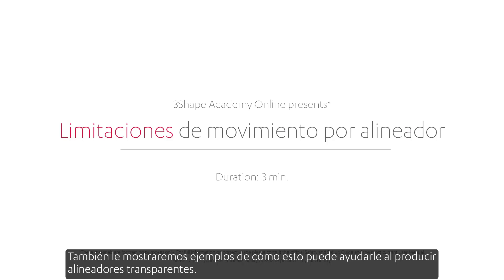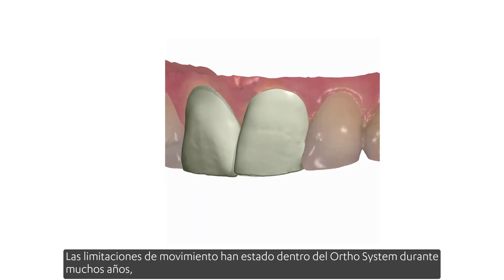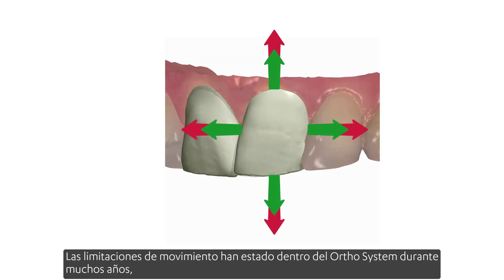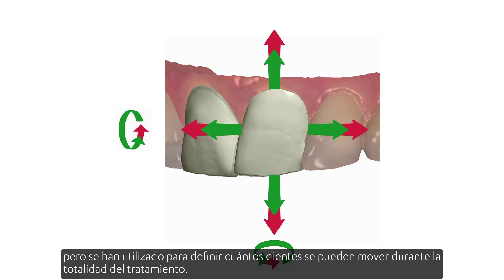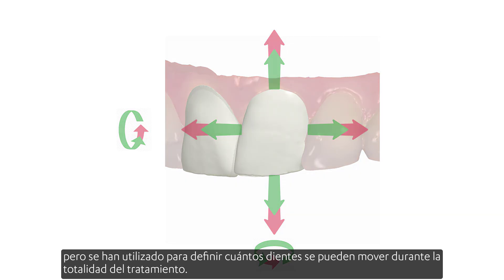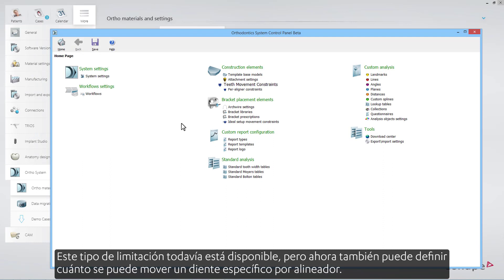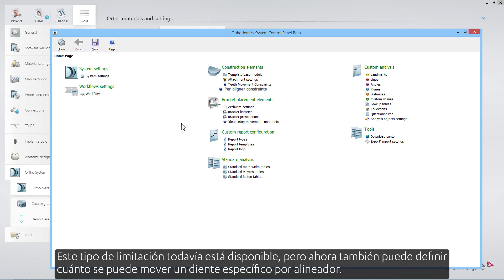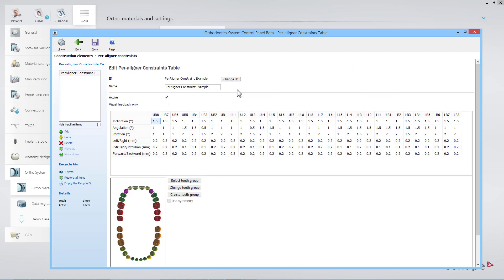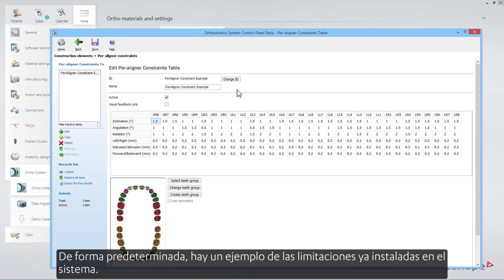We will also show you examples of how this can assist you when producing clear aligners. Movement constraints have been inside ortho system for many years, but they have been used to define how much teeth can be moved for the entirety of the treatment. This kind of constraint is still available, but now you can also define how much a specific tooth can be moved per aligner. By default, there is an example of constraints already installed in the system.